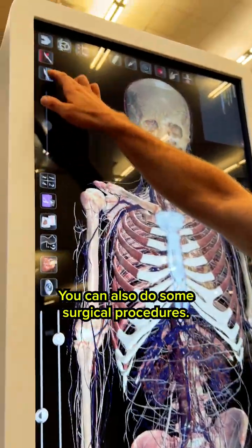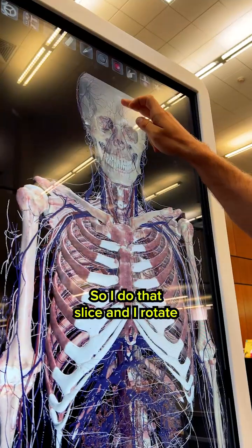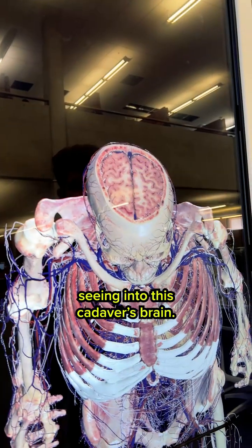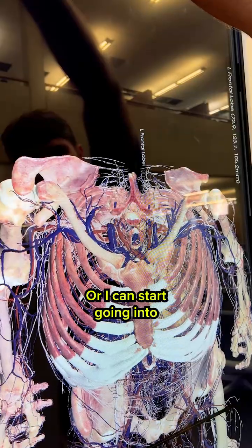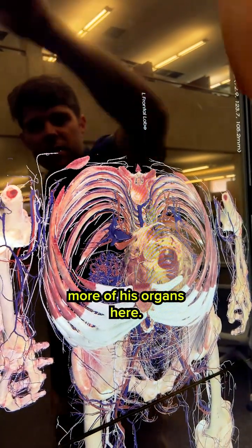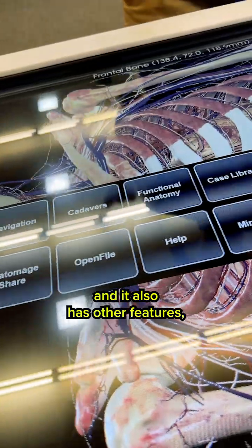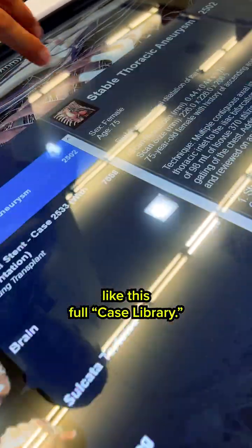You can also do some surgical procedures. I do that slice and I rotate and I can start seeing into this cadaver's brain, or I can start going into more of his organs here. You can see we're starting to see the heart, but it also has other features like this full case library.